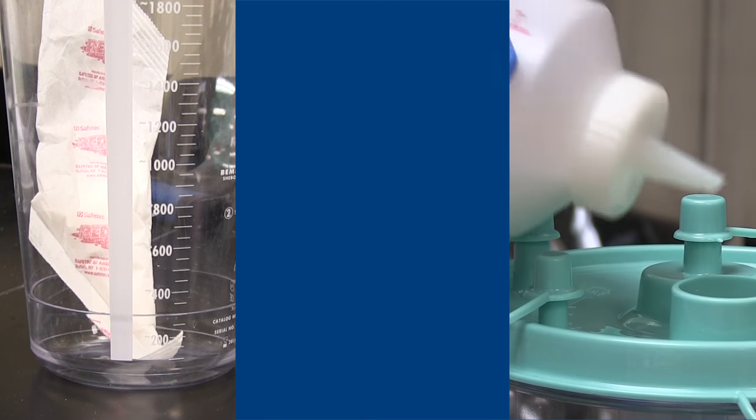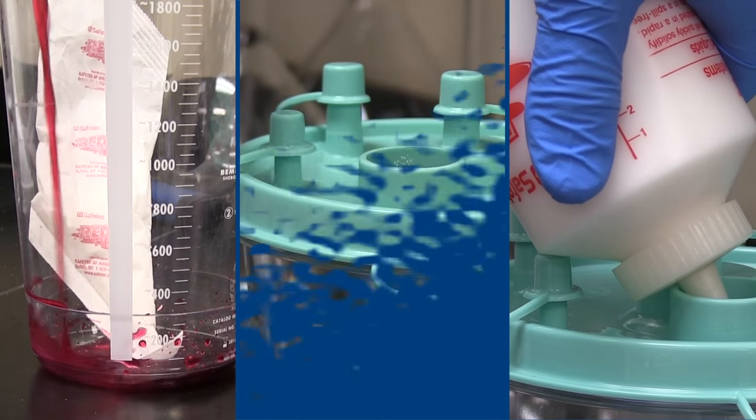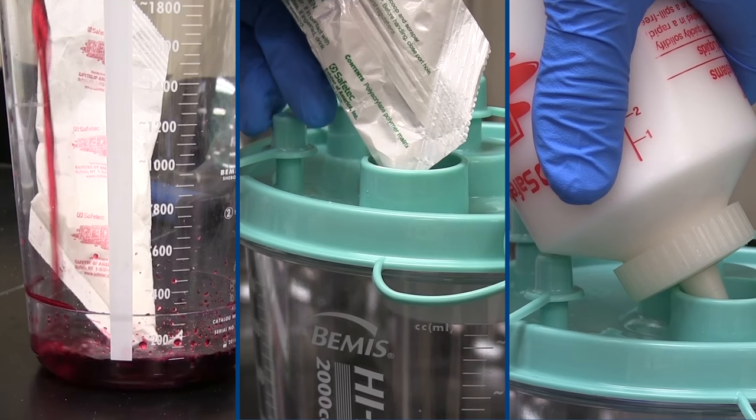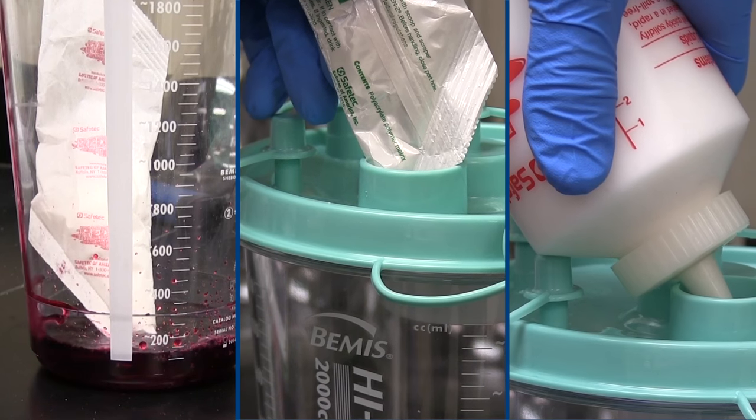The Red Z and Green Z fluid solidifier product lines are a great solution for safe and controlled fluid handling, with the added benefit of offering cost-effective options for varying budgets and applications.